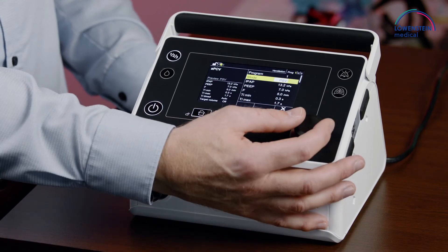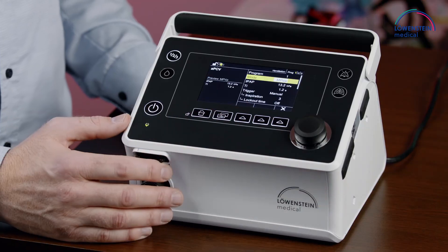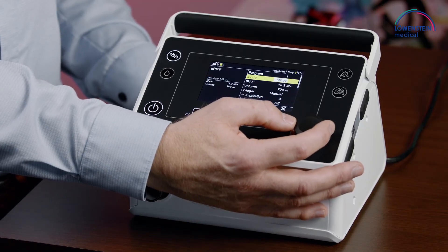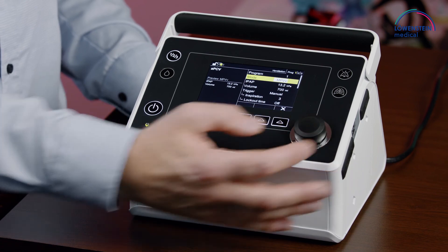When the patient is no longer breathing spontaneously, the device will take over. The PCV mode is a completely controlled ventilation mode. We also have mouthpiece ventilation modes: pressure controlled and volume controlled.